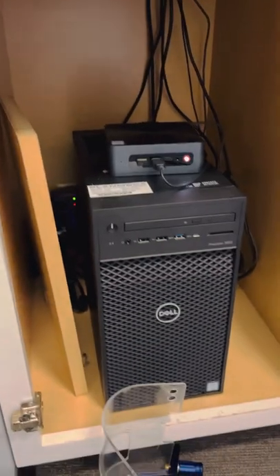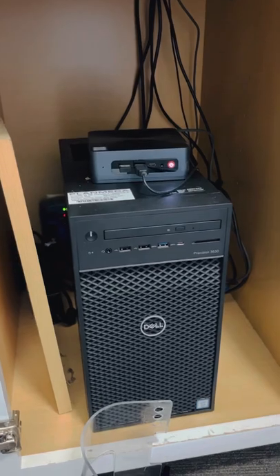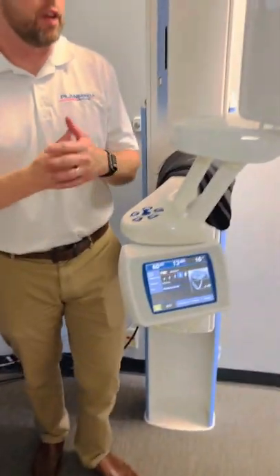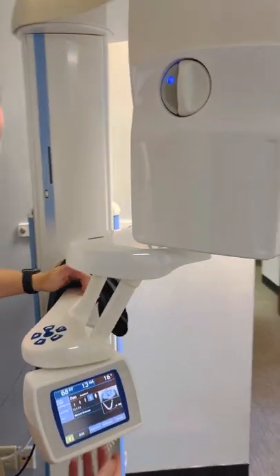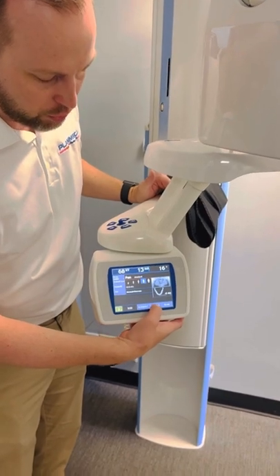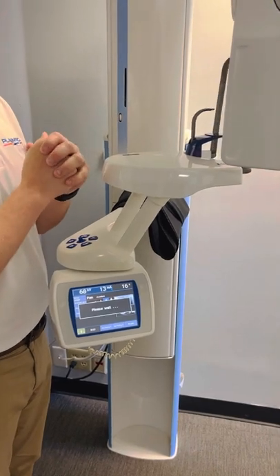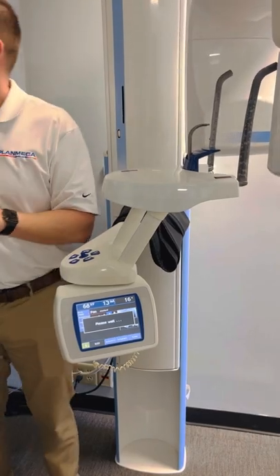This is the reconstruction computer — it has to be turned on for the cone beam machine to work. You'll see it's lit up here when it's on. If the machine is out of position, it should not be in that position typically. At the bottom you'll see buttons that say 'Go Entry One' and 'Go Entry Two.' If you hit Go Entry Two, it resets to the proper position for the patient to enter the machine.